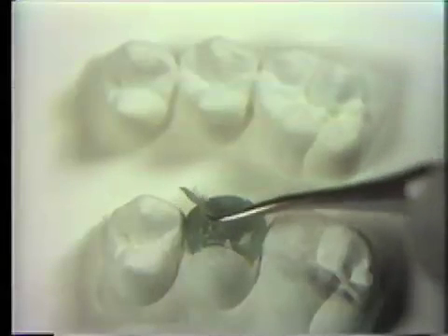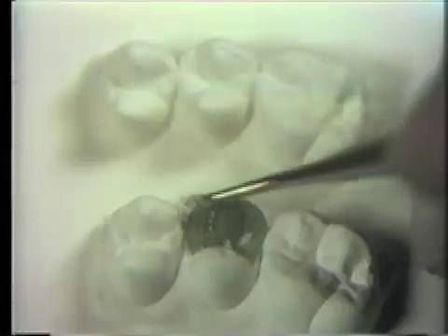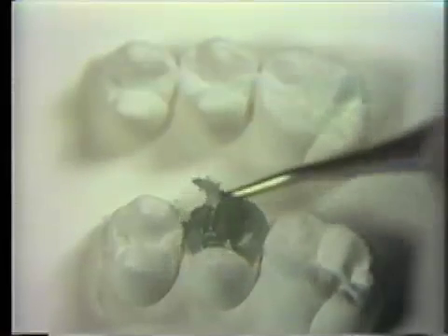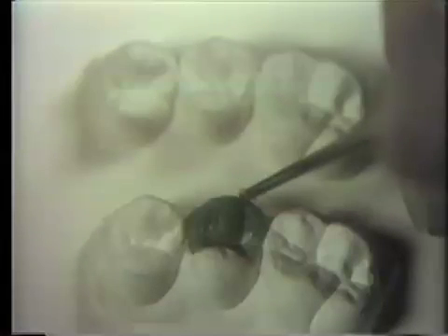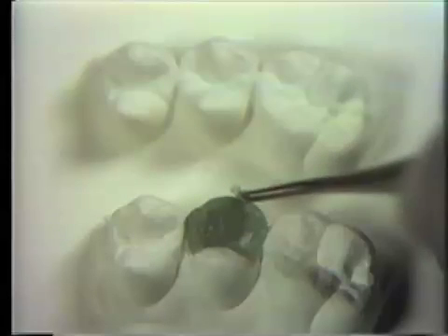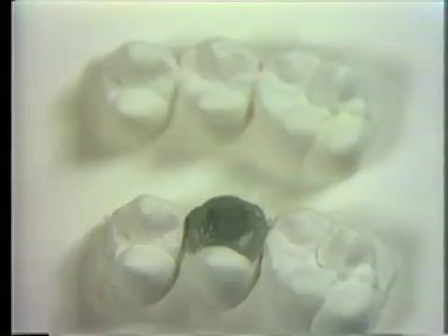To achieve a very accurate wax replica, one needs to approach this exercise like an artist — adding, carving, and reheating different parts until satisfied that your wax creation exemplifies every feature. Especially notice the cuspal shapes, both mesially, incisally, and distally, and from different angles. Constantly remove the debris with zinc stearate on the brush.